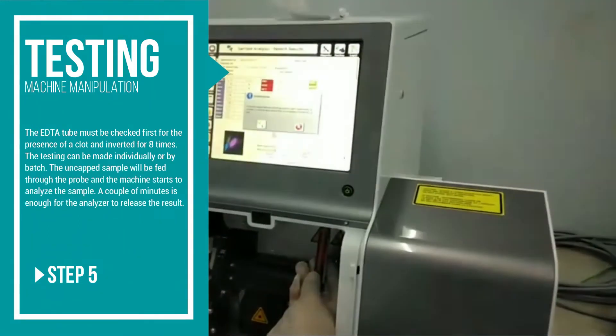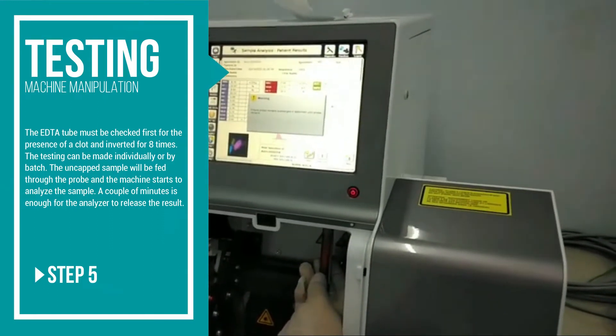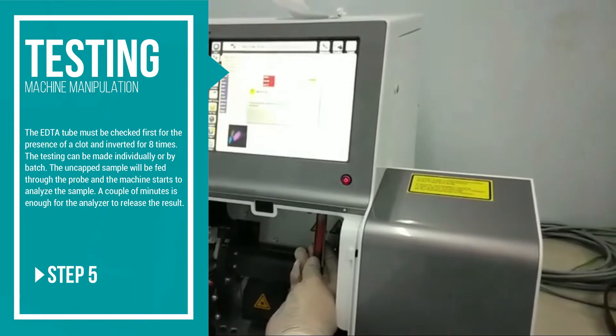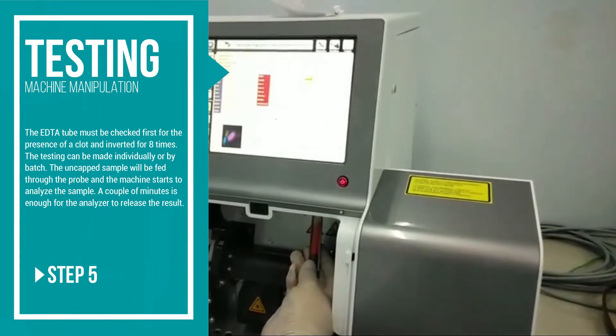The testing can be made individually or by batch. The uncapped sample will be fed through the probe and the machine now starts to analyze the sample.